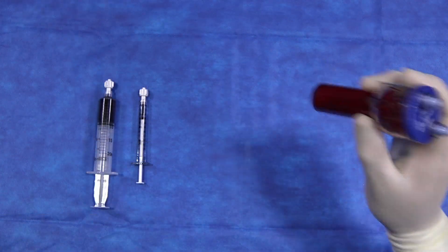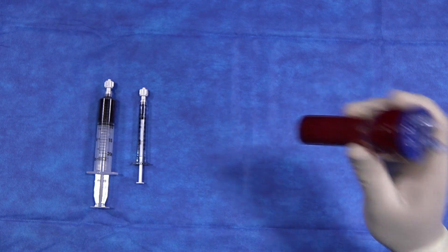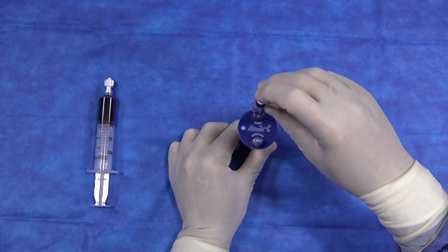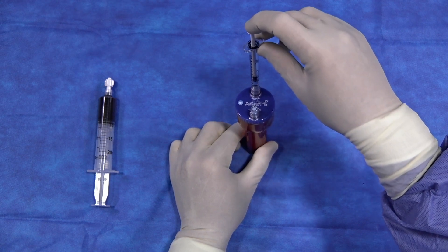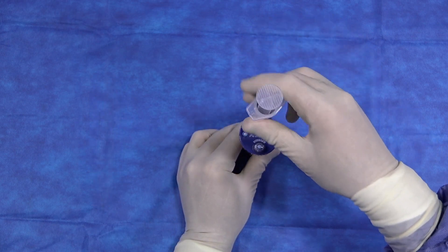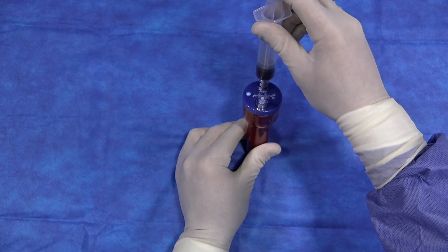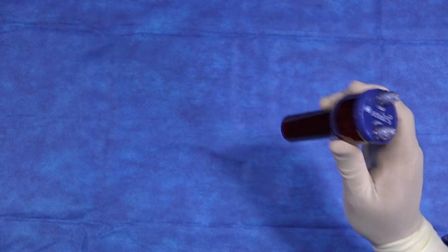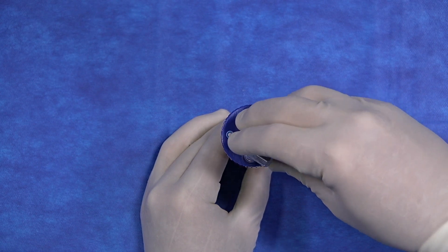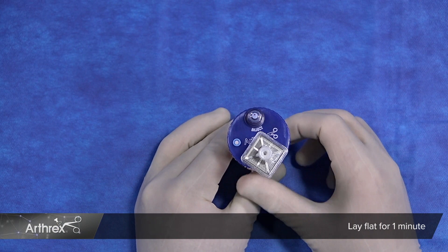It will be necessary to break this clot by shaking vigorously for 5 seconds. We will introduce 0.2 milliliters of 10% calcium chloride solution into the injection port, followed by 8 milliliters of whole blood. We will then shake vigorously for 5 seconds, and then attach the filter on the withdrawal port and lie flat for 1 minute.